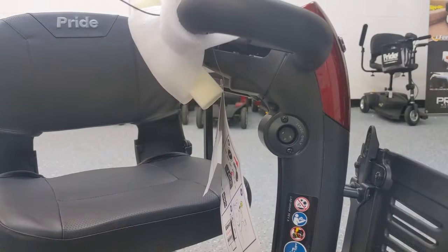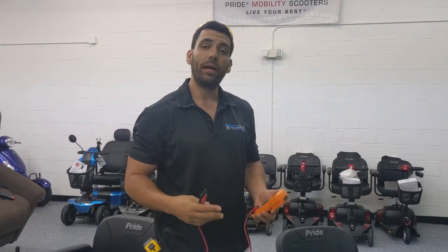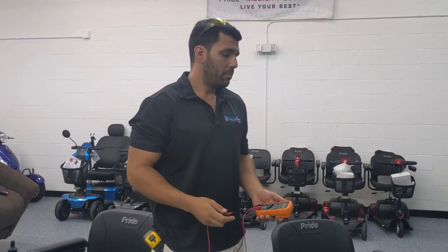That's all fine and well, however a battery can read a full charge and still actually be a bad battery. That's because some batteries will lose their ability to retain a charge for a very long time. You may notice your scooter charges up fine but then it only lasts for a few hours, an hour, maybe 20 minutes — and that's because your batteries are bad and they've been mistreated or are malfunctioning in some way.